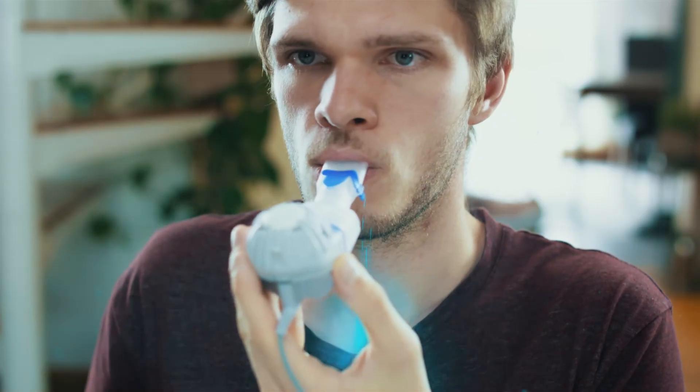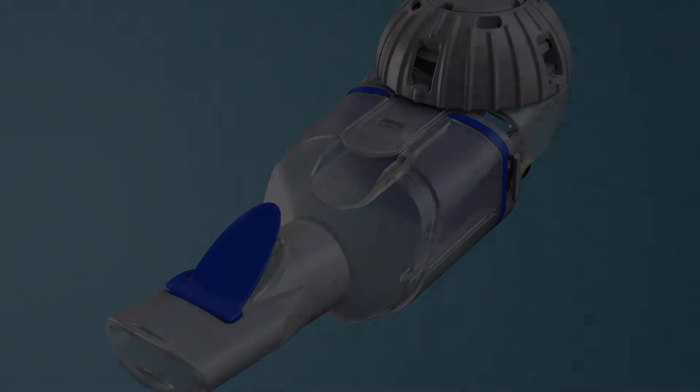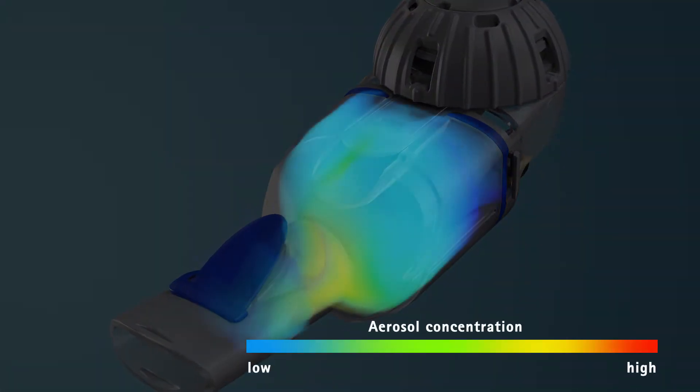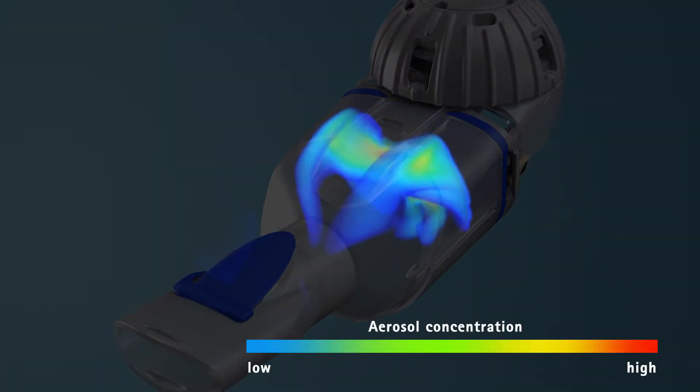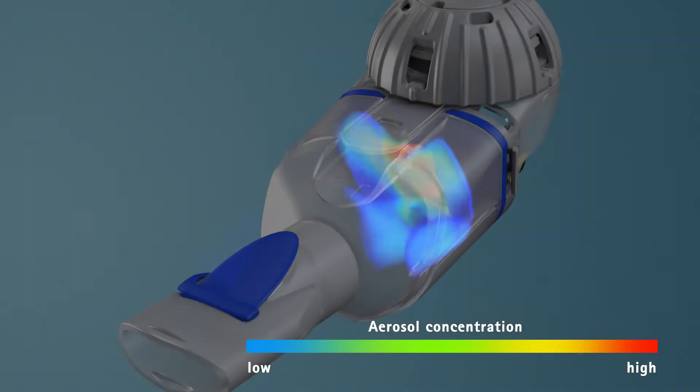At the beginning of each inhalation phase, the aerosol, continuously generated by the tailored vibrating membrane, is inhaled through the mouthpiece and delivered into the lungs.